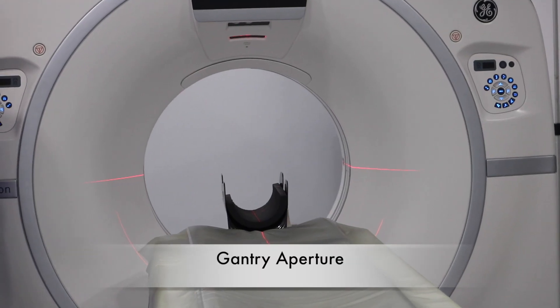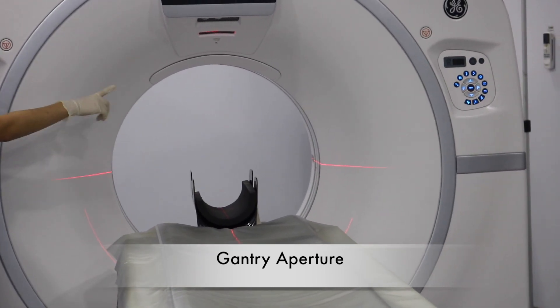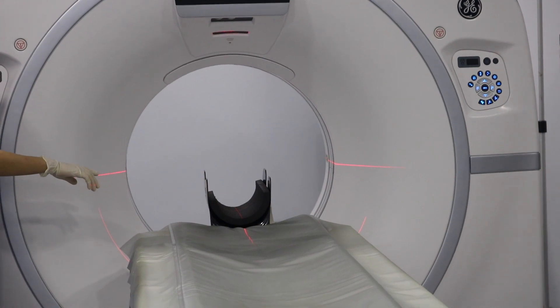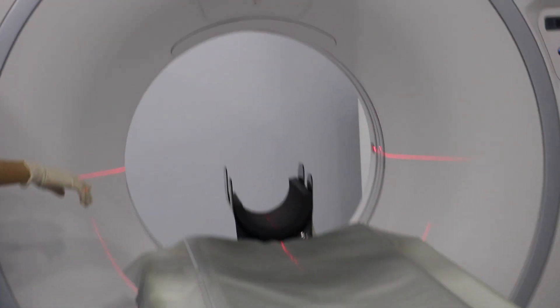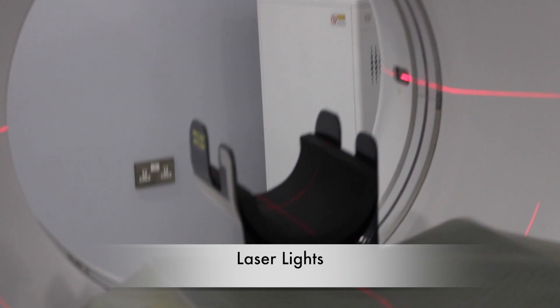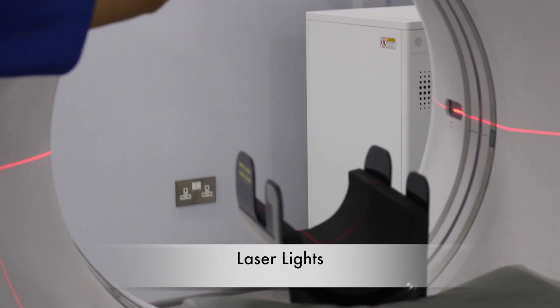Back to the CT machine instrumentation, the most visible part in the unit is the gantry aperture. It's the opening in which the patient is positioned during the procedure, as it contains the x-ray tube and the detector. As we can see, here are the laser beams that aid in patient positioning.